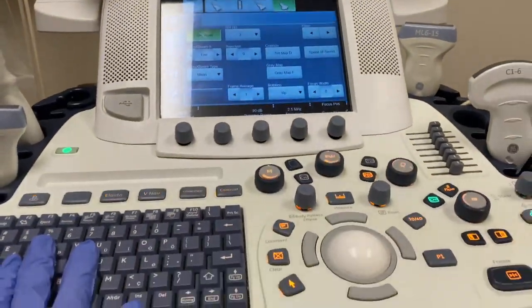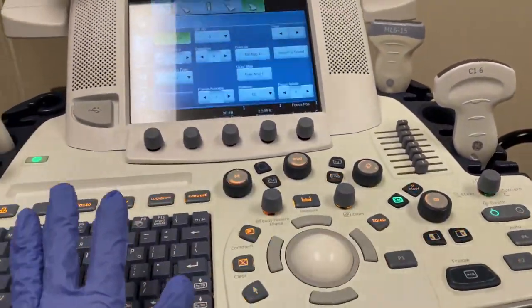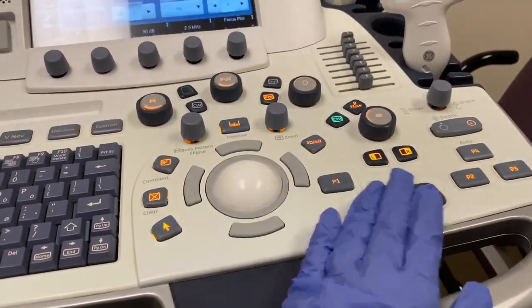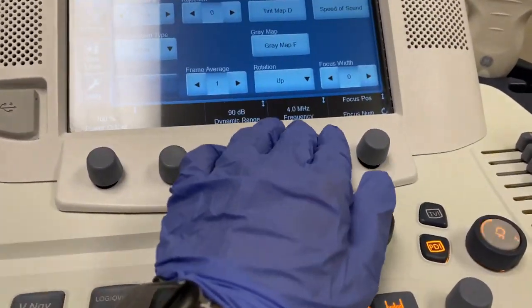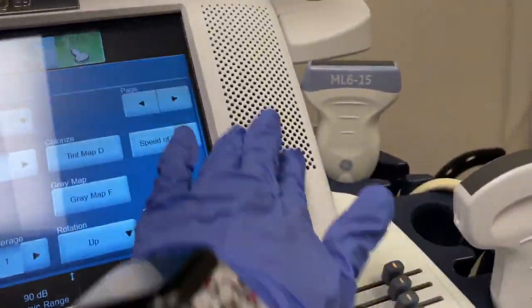Yeah, it's a lot, but in lab you will be taught how to use the machine and all of this. Once you know how to use one machine, you should pretty much know how to use all of them. They all have the same buttons and the same functions. It's just that some have different ways of getting to them or different ways of working. Sometimes the frequency button won't be right here. Sometimes the frequency button will be over here, or sometimes this button will be over here on this part.